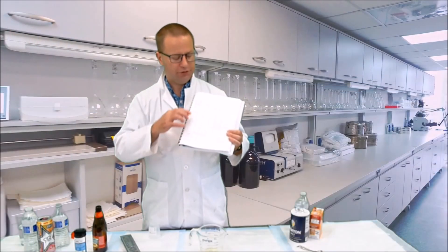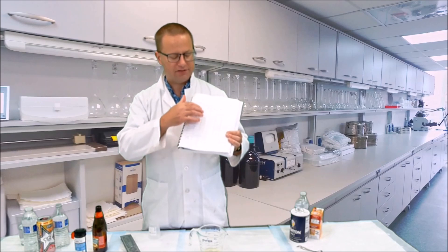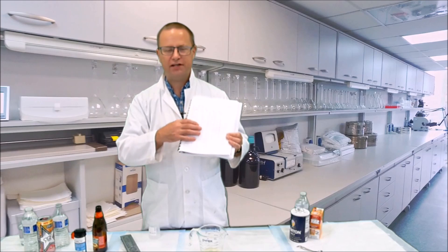So after each urine void, you're going to record all the information here about specific gravity, volume, and pH in your lab manual. You also want to transfer that information to the database link that I sent you last week.